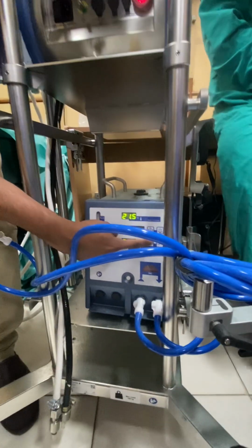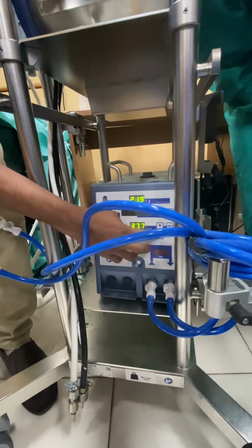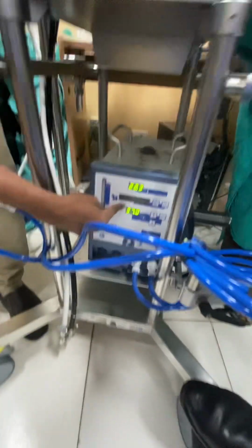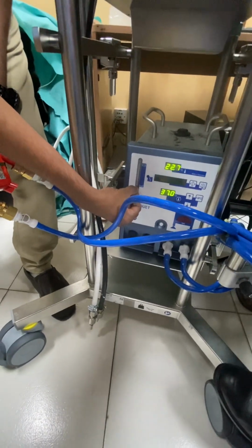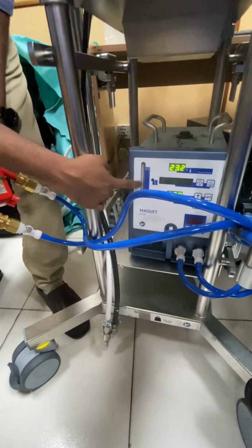So sir, with using this knob you can set the temperature. For example, if the patient is 35, you want to make it to 37. Now you have made 37. This is the water gauge indicator. This is the minimum you have to keep, and this is the maximum. So now it is giving this alarm because there is no water.